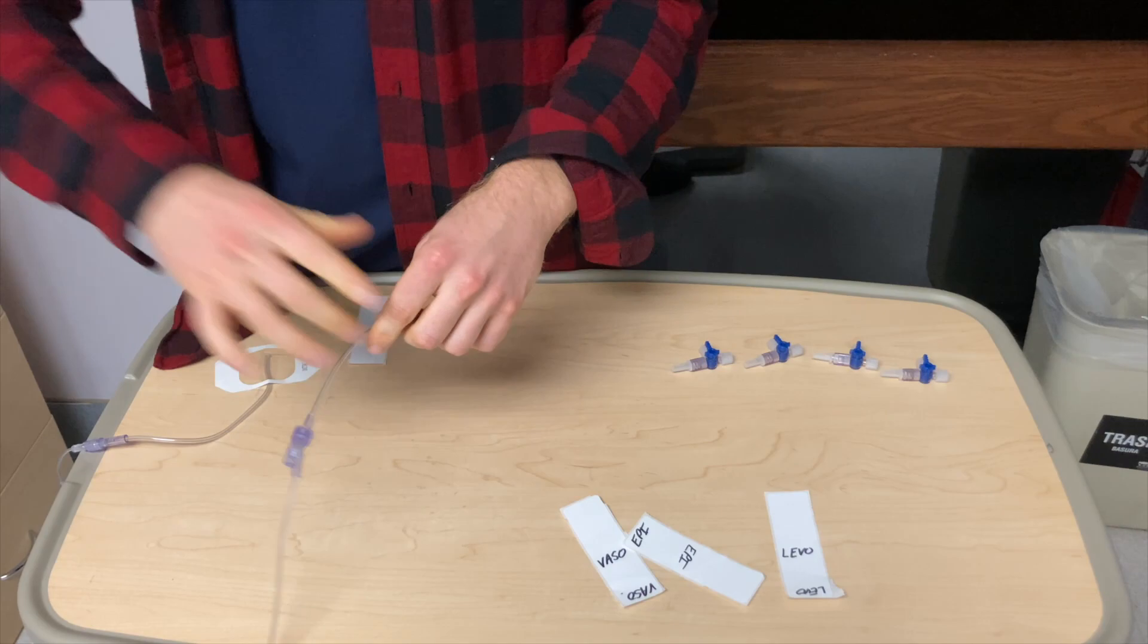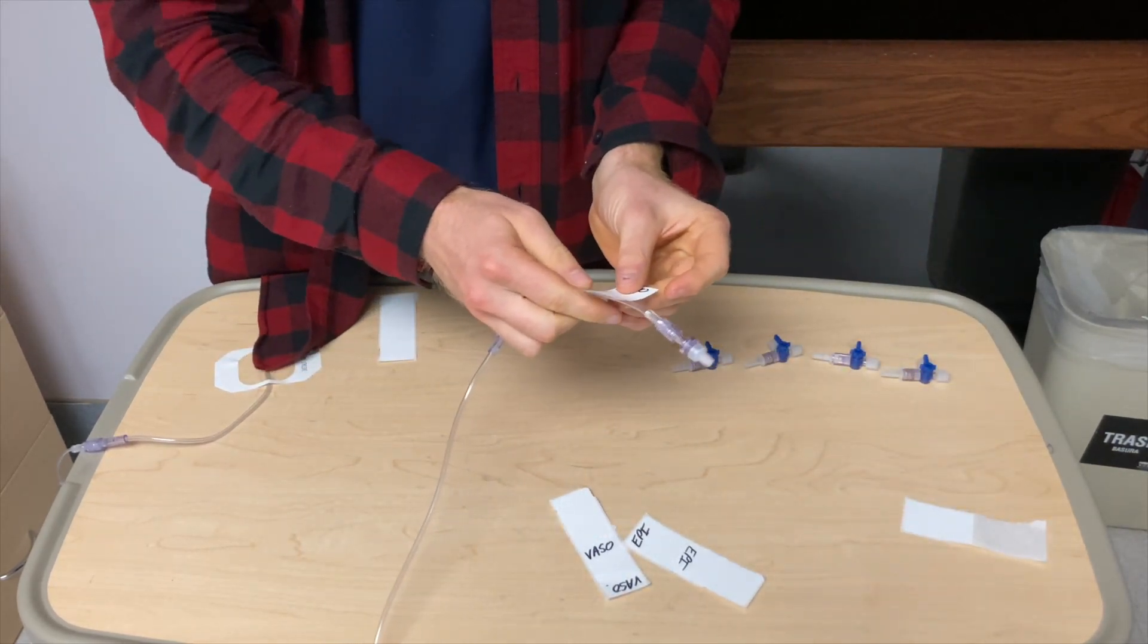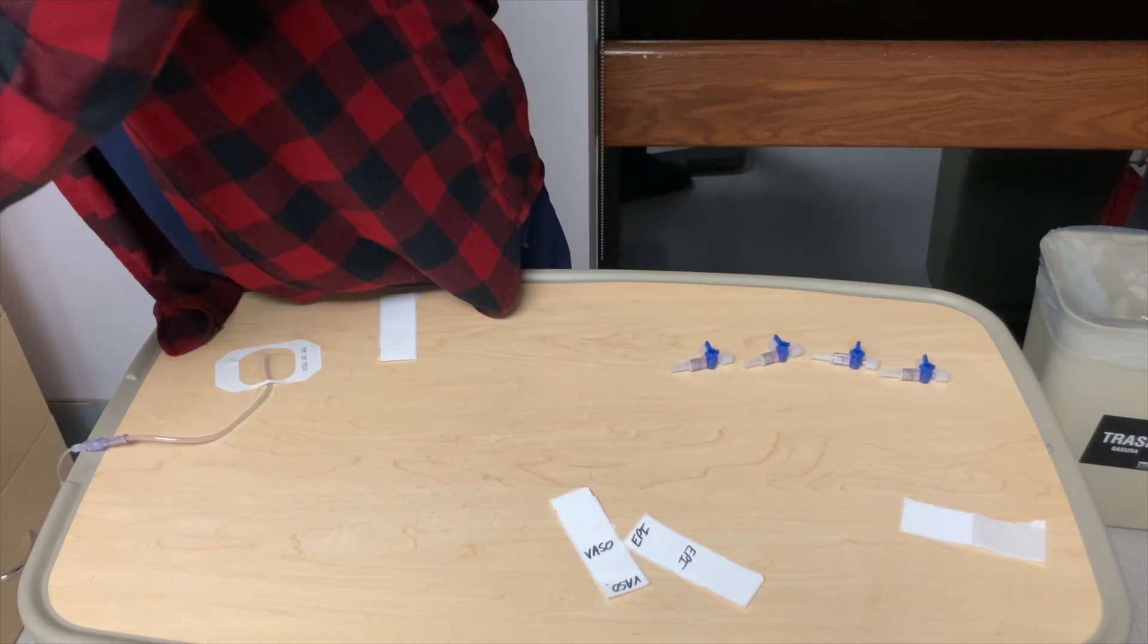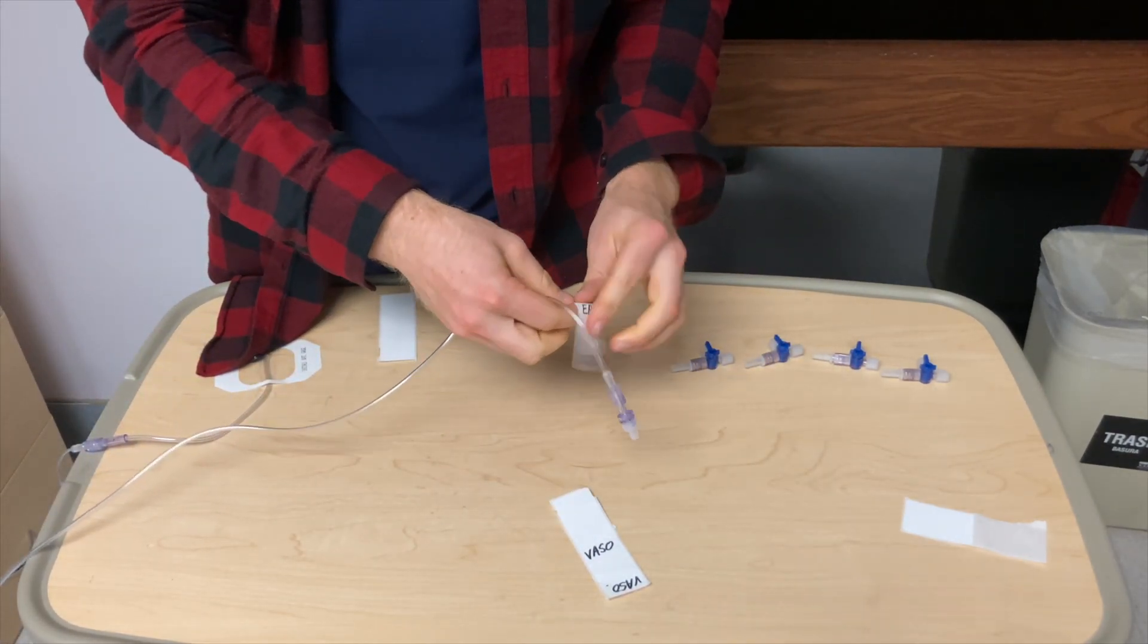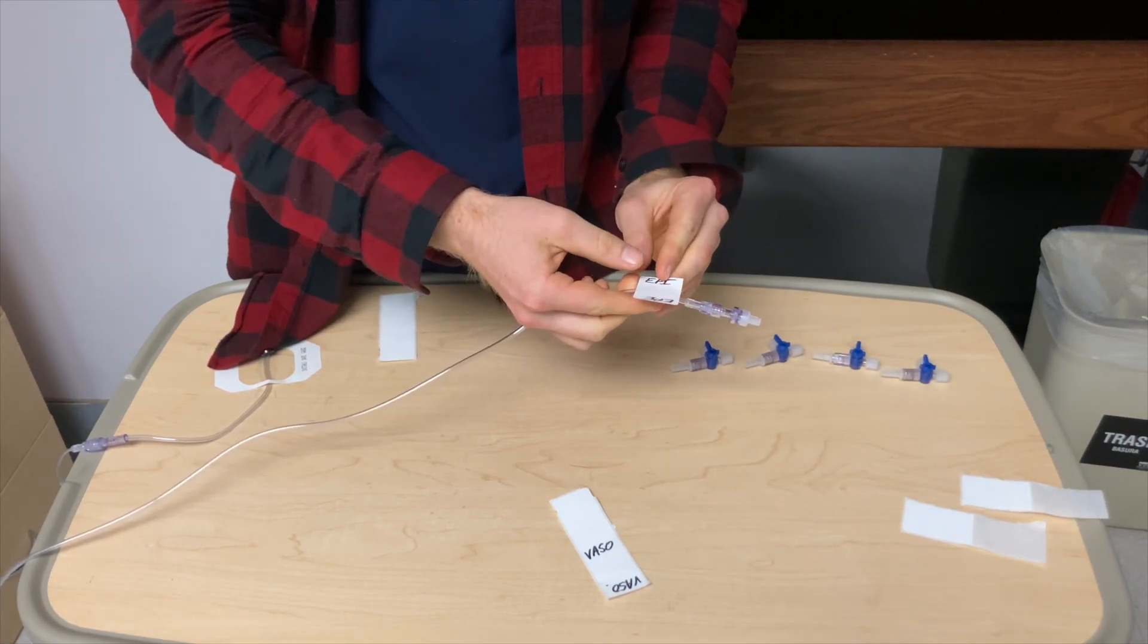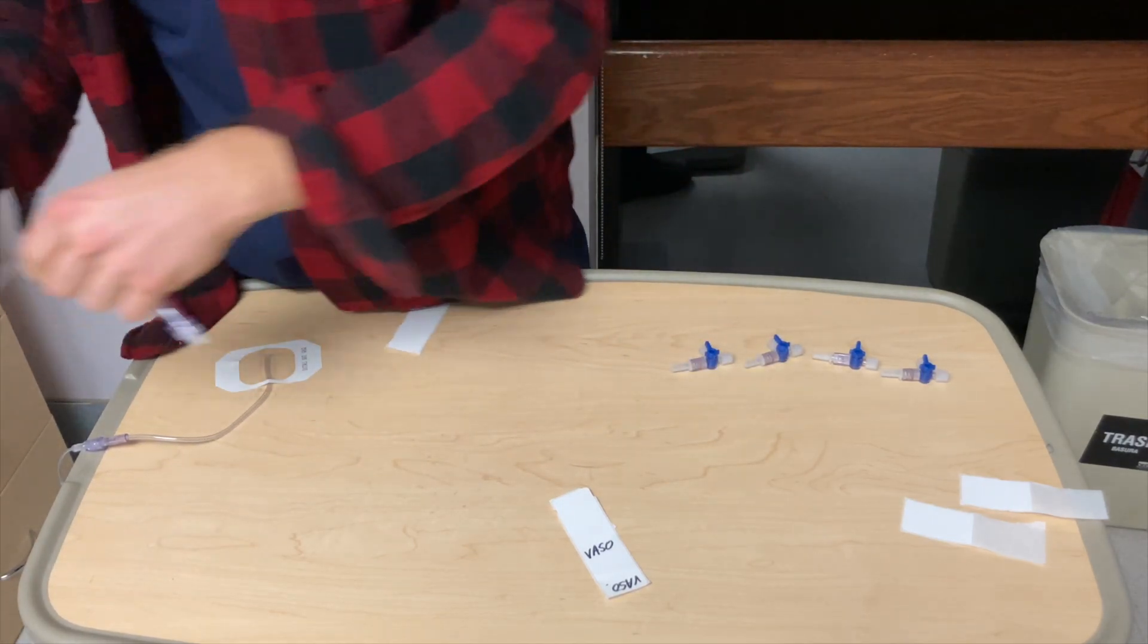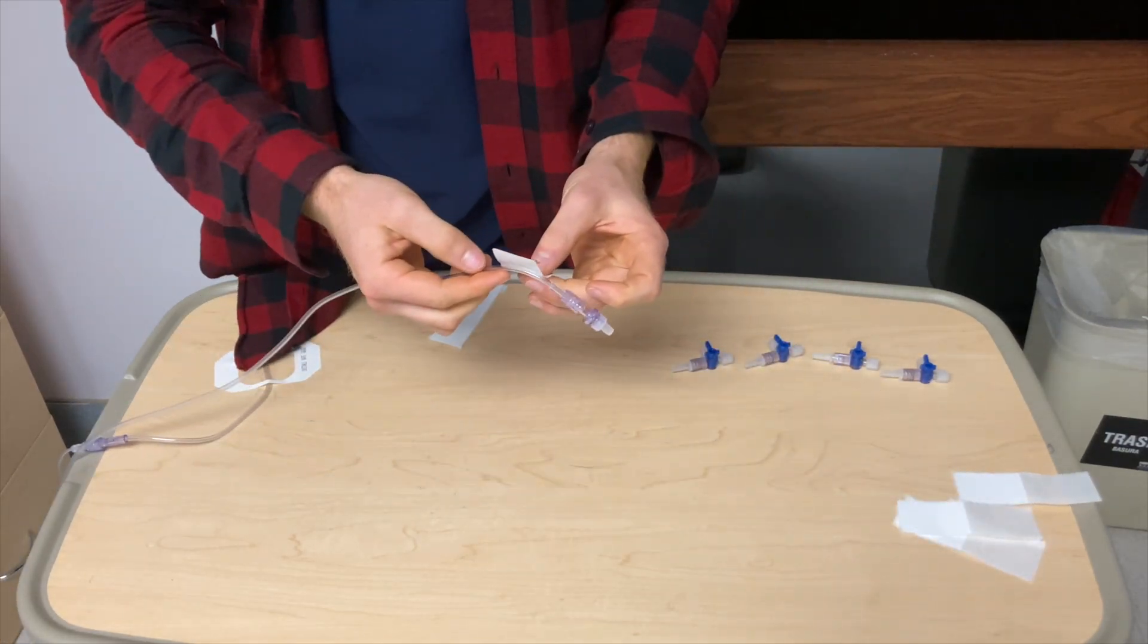Alright, so then you do LEVO on the LEVO line, and I put it right there at the end, so when you see it going into the patient, you know exactly what medication it is. So we'll do EPI on the EPI line. Boom, like that. And we'll do a VASO on the VASO line.